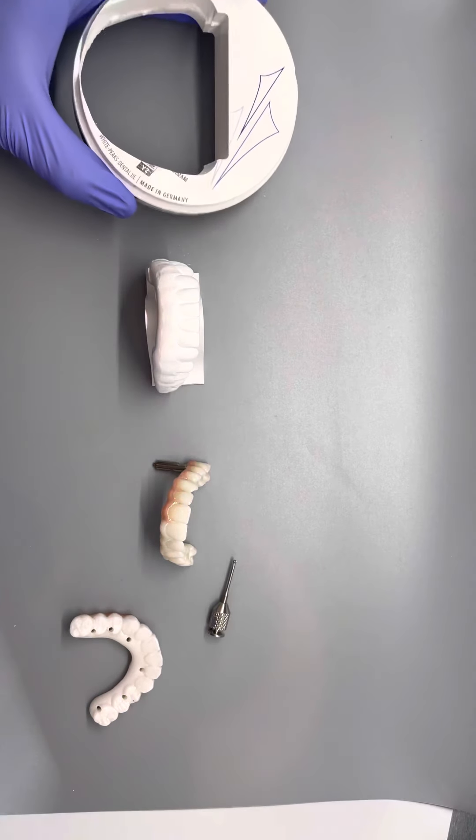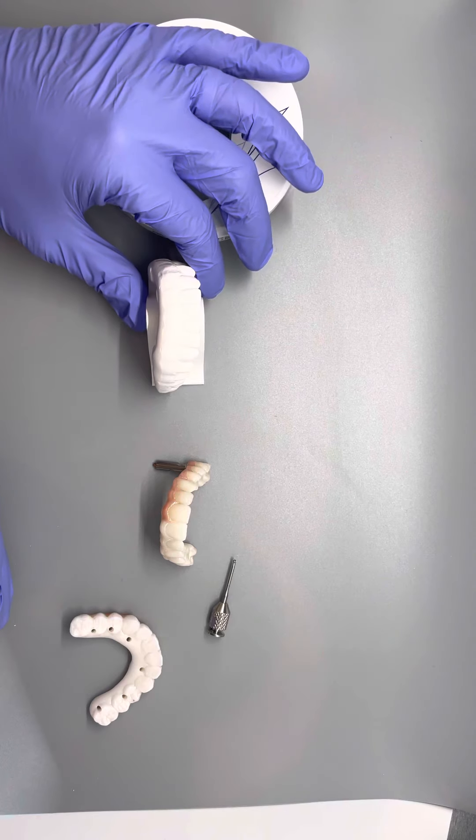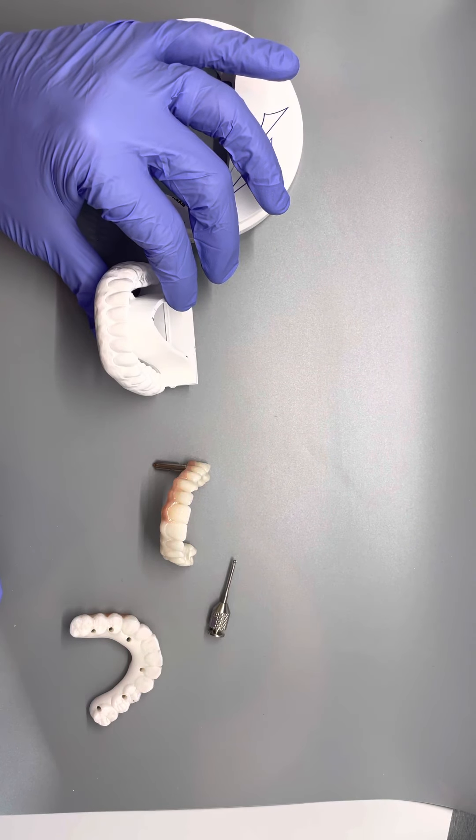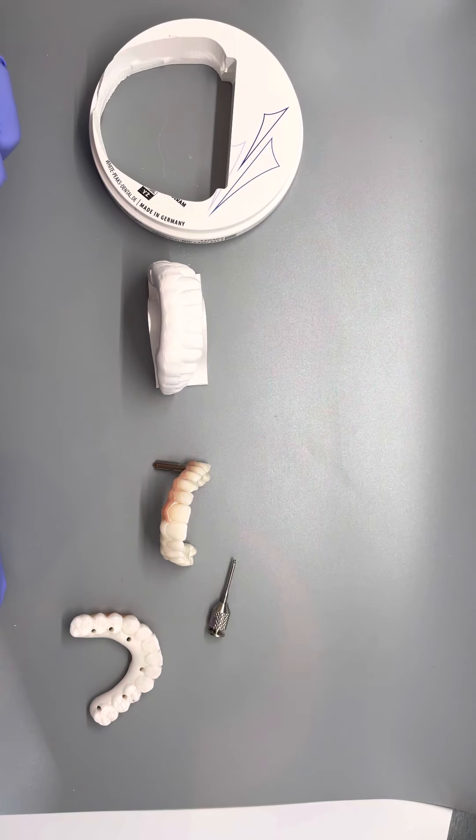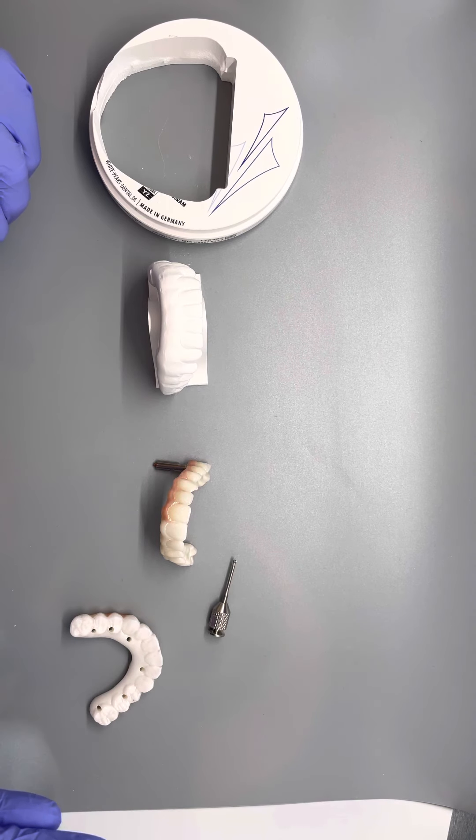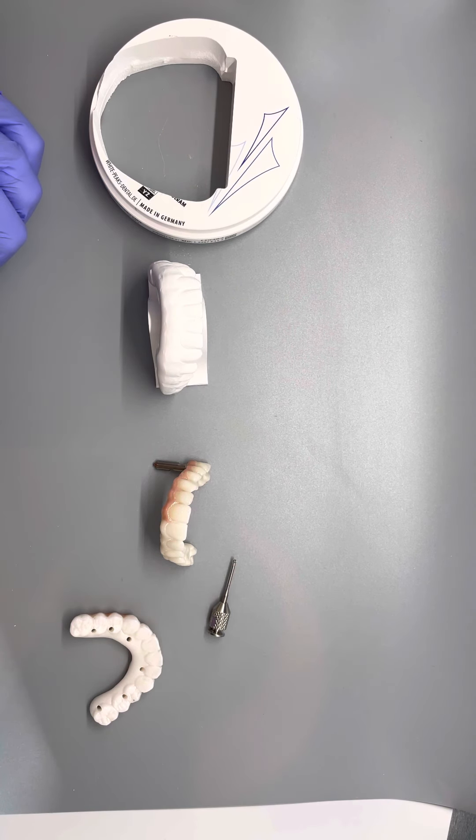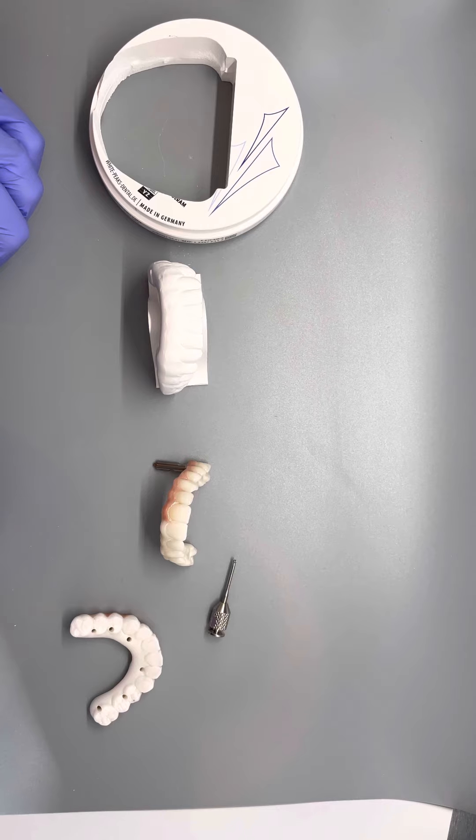Hey guys, Dr. Cunningham here. Today I wanted to go over with you the process of how we fabricate a screw denture, and so I kind of have a process here of all the different steps of what we do.